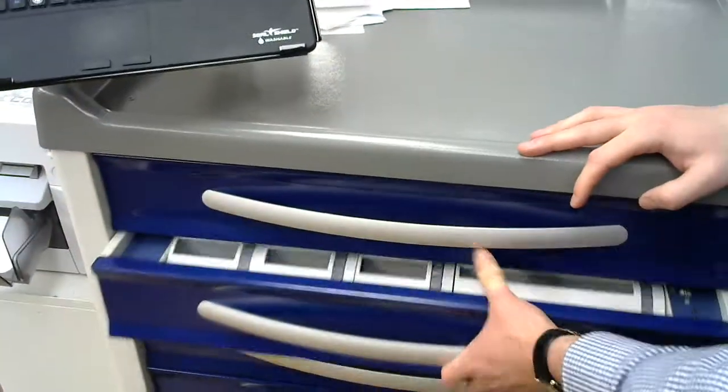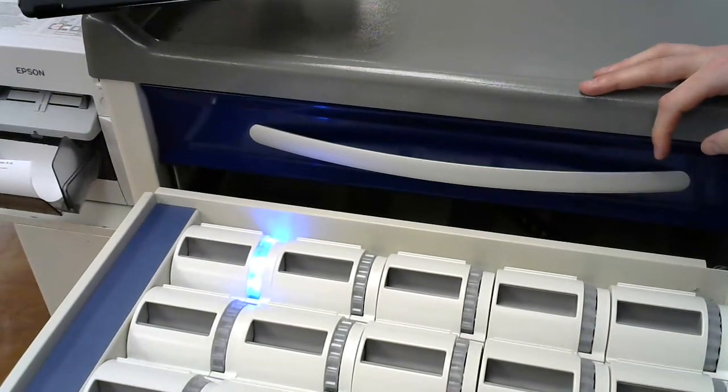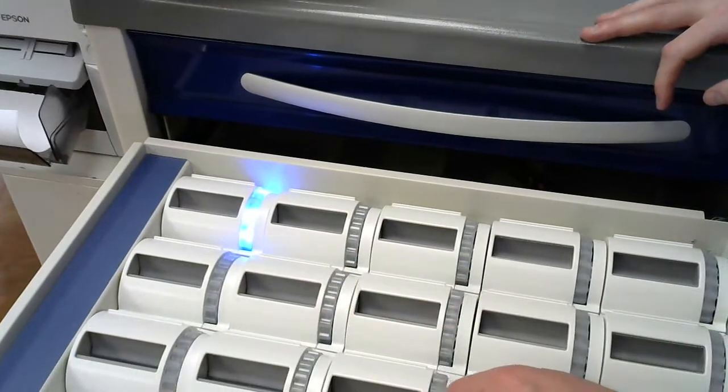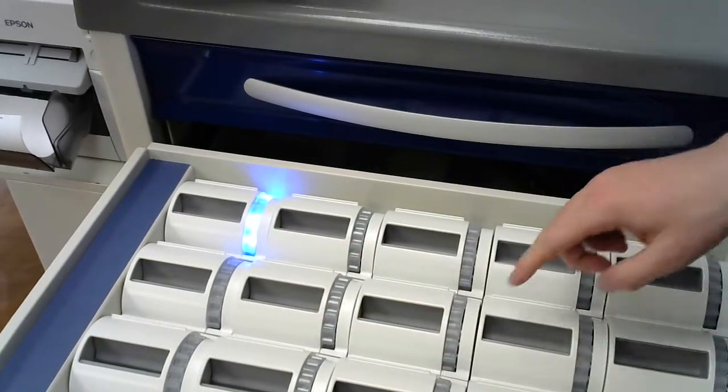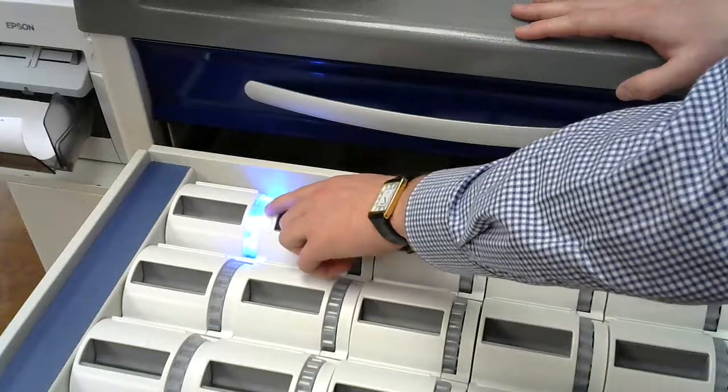This will now unlock this tray, which are our single dose bins. Any of these trays that have not been set to open will be locked. We won't be able to move it any farther. But we'll see here with the blue light.